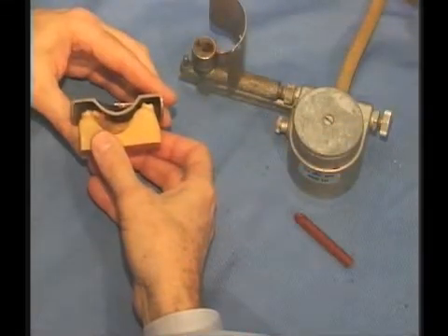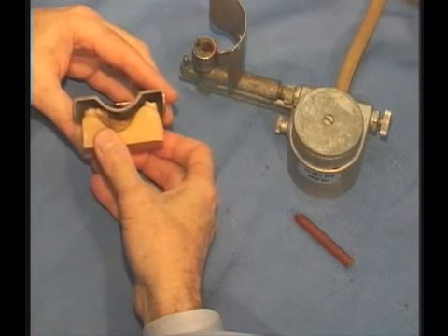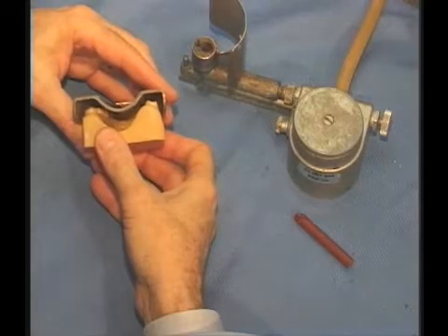One of the important points about accuracy of any impression material, including alginate, is that we have a uniform amount of material. For alginate, we need a quarter inch or six millimeters of material.